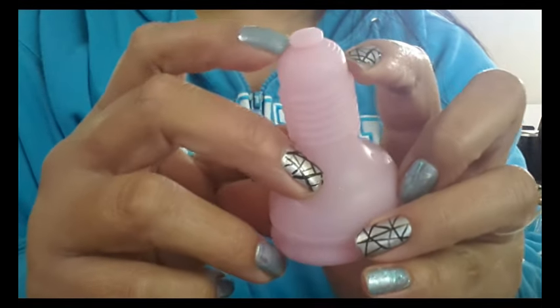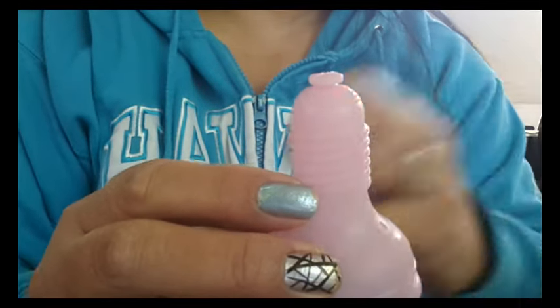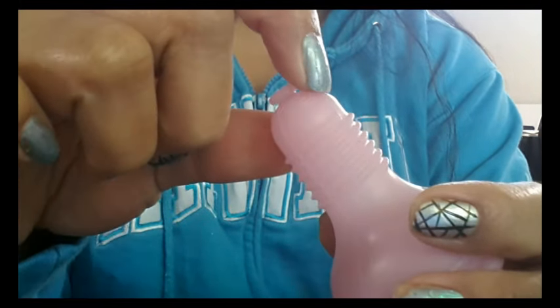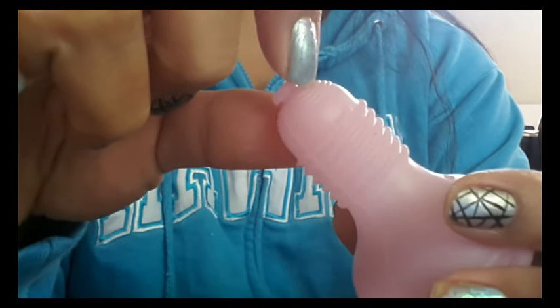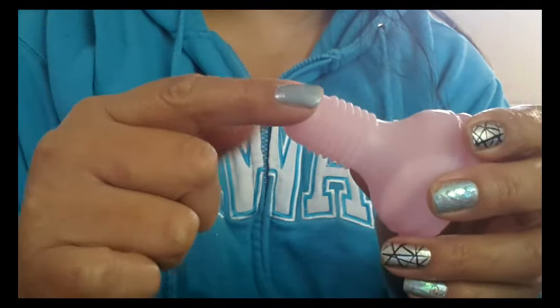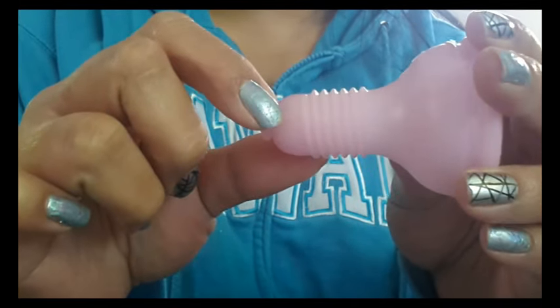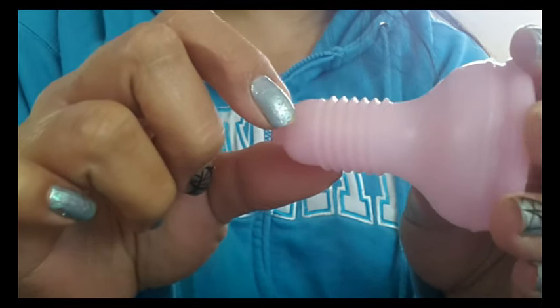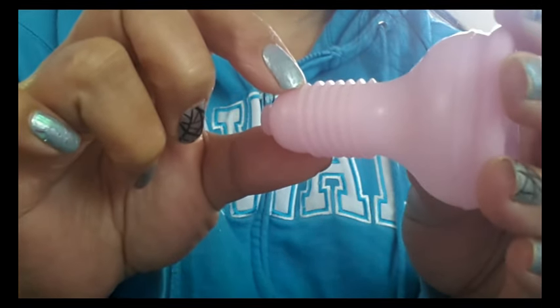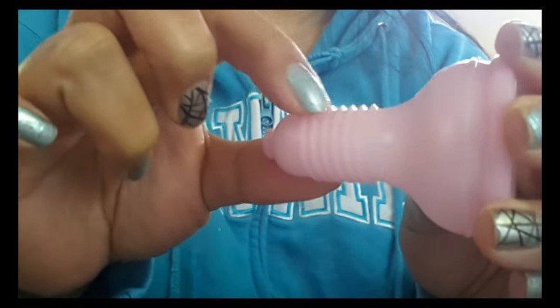Right under that there are four grip rings — I think that's for if you don't use an applicator and you're trying to remove your cup, you have something to grip onto. They're not really raised and they're very thin. However, if you are not using an applicator, the cup still comes with these threads on it, so you could use that as well. The threads are quite raised off of the cup and quite pointy — they're rounded but because they're raised so much they seem to come to a sharp point at the tops.